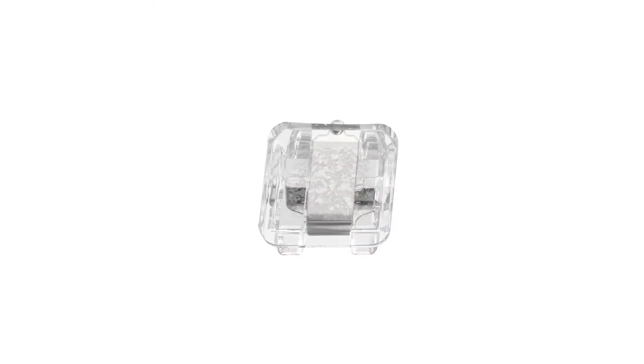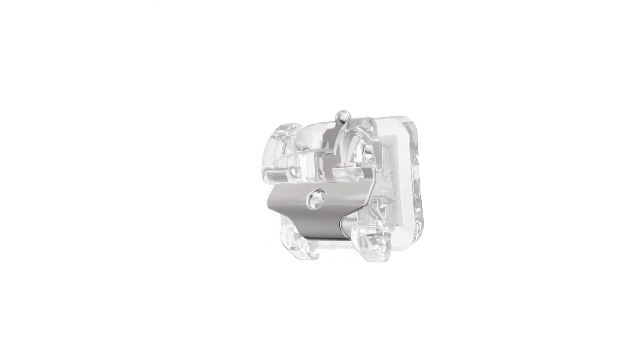For those seeking a clear aesthetic option, Empower Clear is also available in the same patient-friendly design.